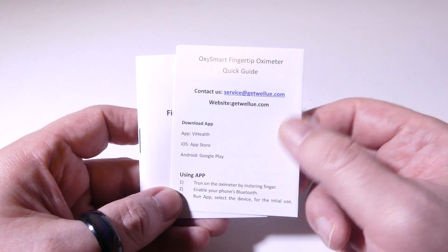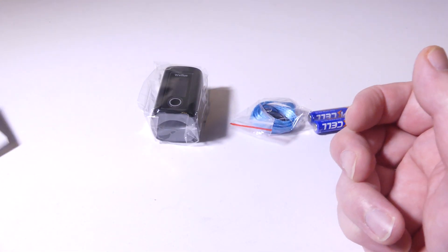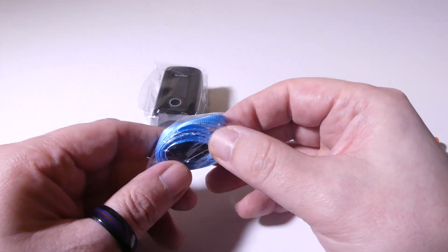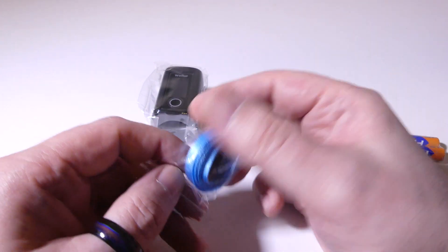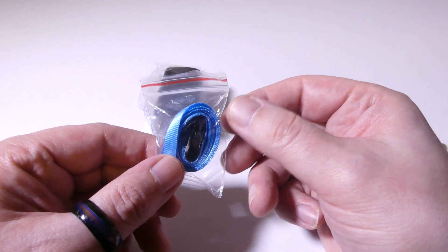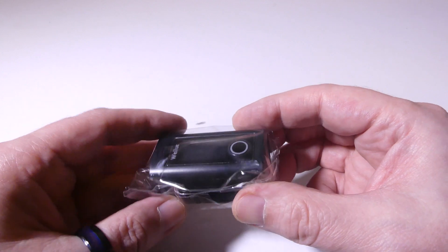We're going to be using the vHealth app, available on the App Store for iOS and Android. I'm going to be testing out the Android side. It does take two AAA batteries, and they do include those. It also comes with a lanyard, so if you want to put this around your wrist, attach it to a book bag when traveling, you can do that as well.